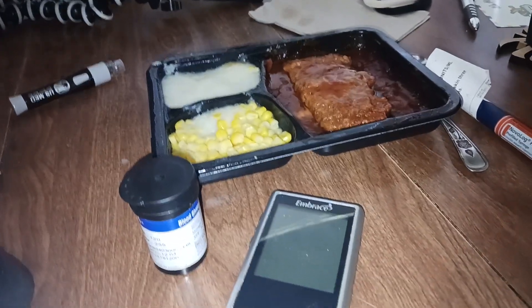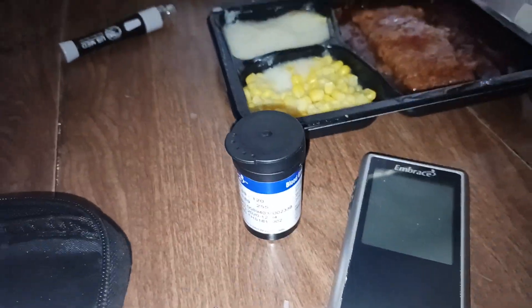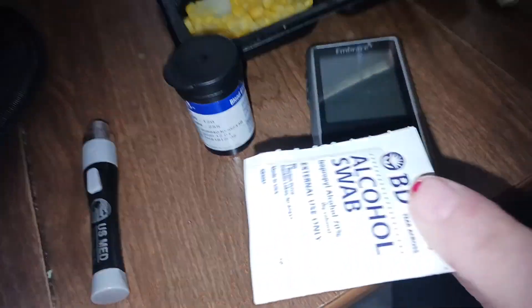Y'all know my video's premiering tonight. I am going to check my blood sugar — as most of y'all know, I am a type 2 diabetic. This is my testing supplies right here. Some people are gonna say she ain't doing this, but okay, we have alcohol prep. Let me set y'all down to the side.